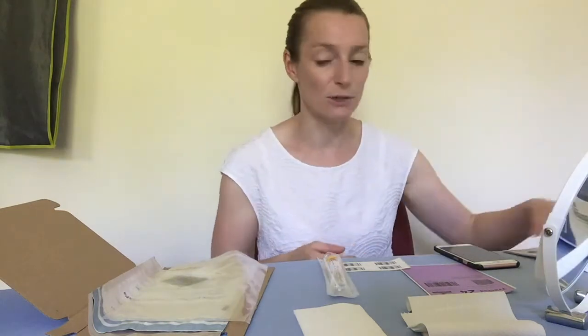When you get your kit through the post, it comes in a bag and there's lots of things inside it. As part of it, there's an instruction booklet — it's pretty thick, but it's quite self-explanatory and you can follow the pictures and instructions to see what to do.